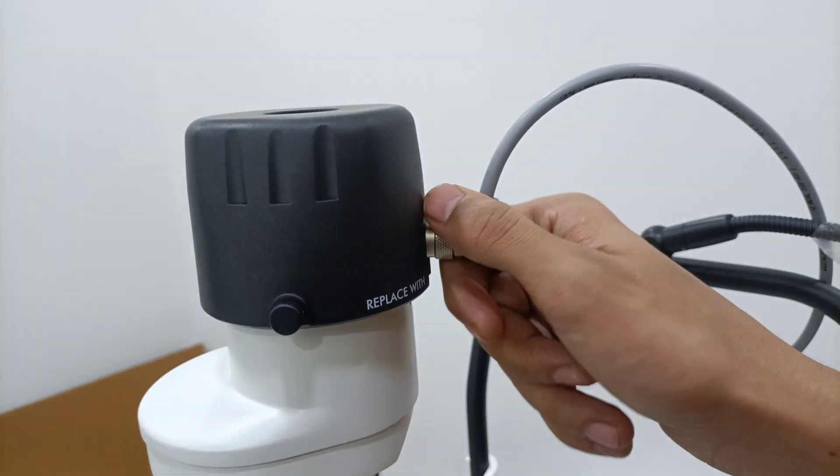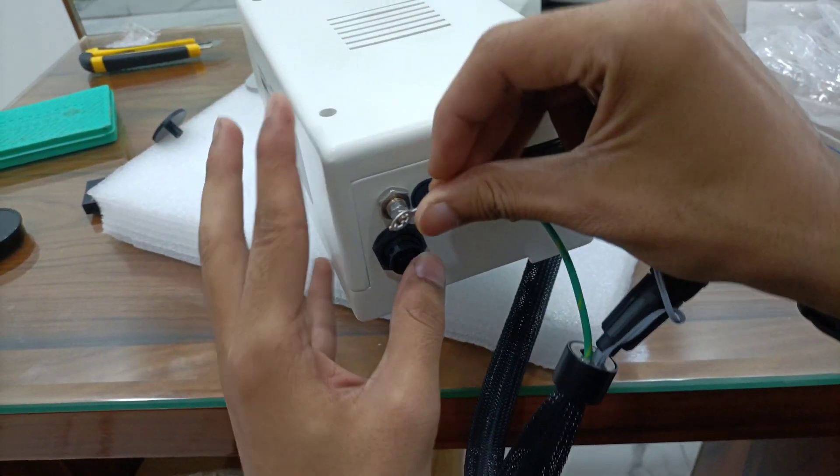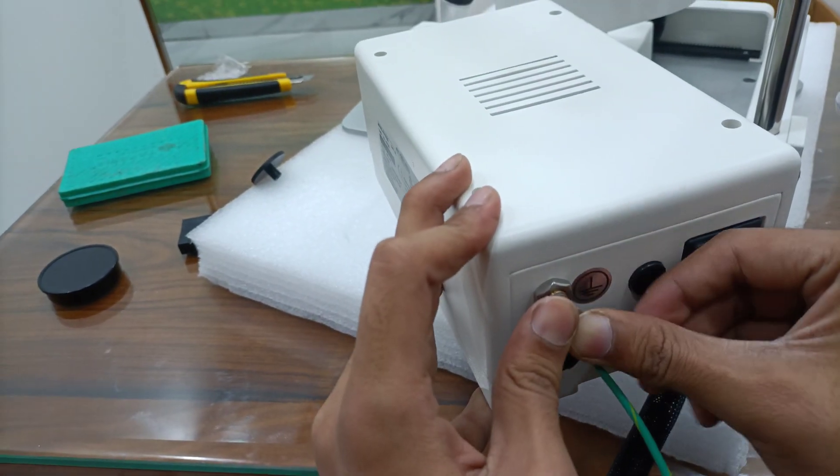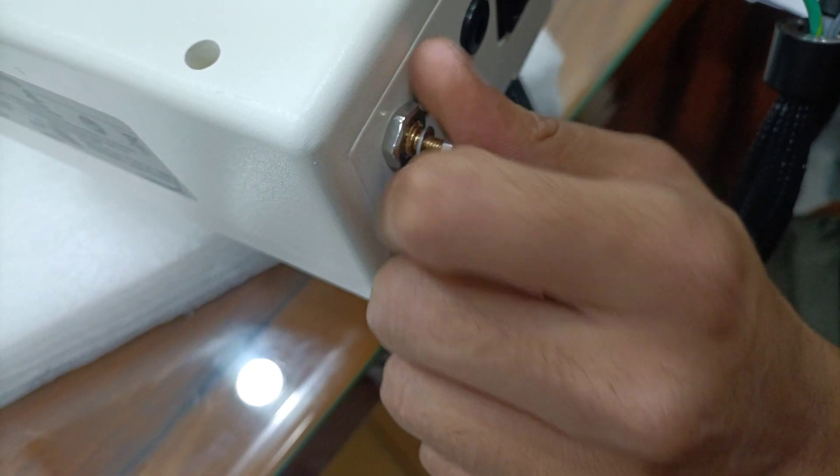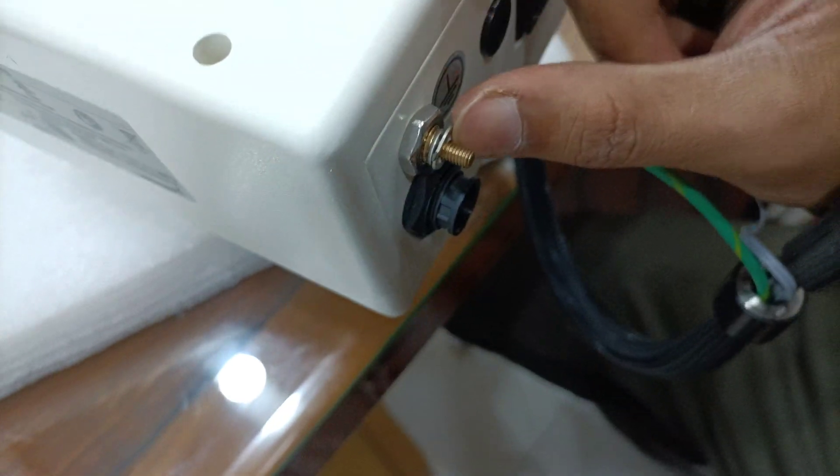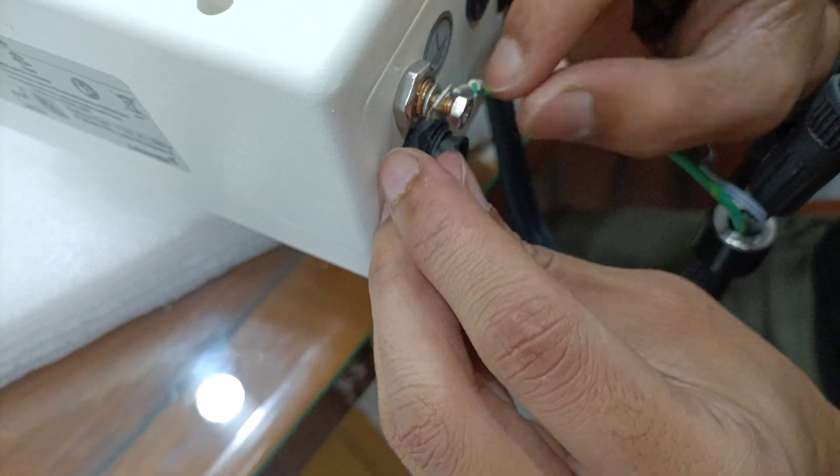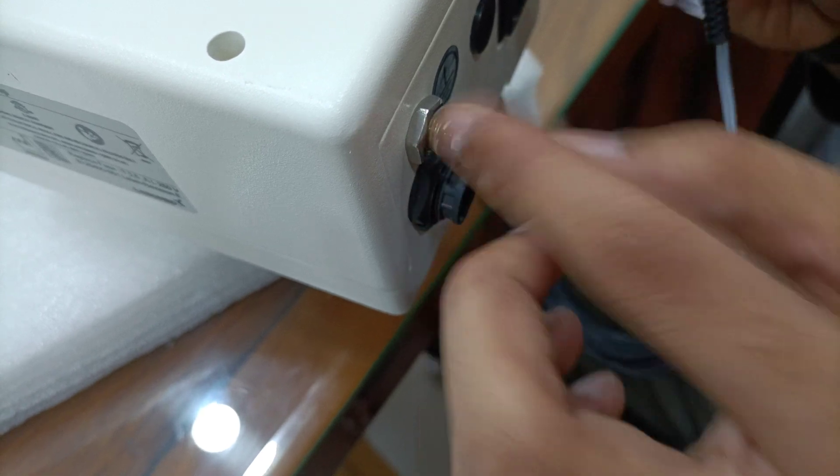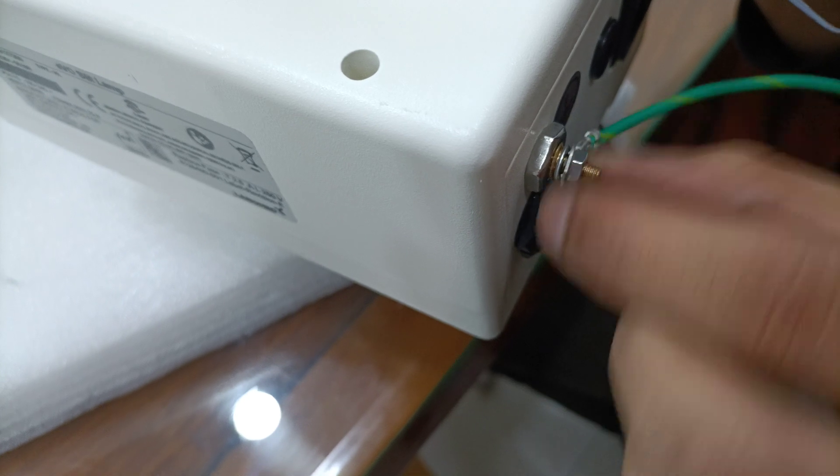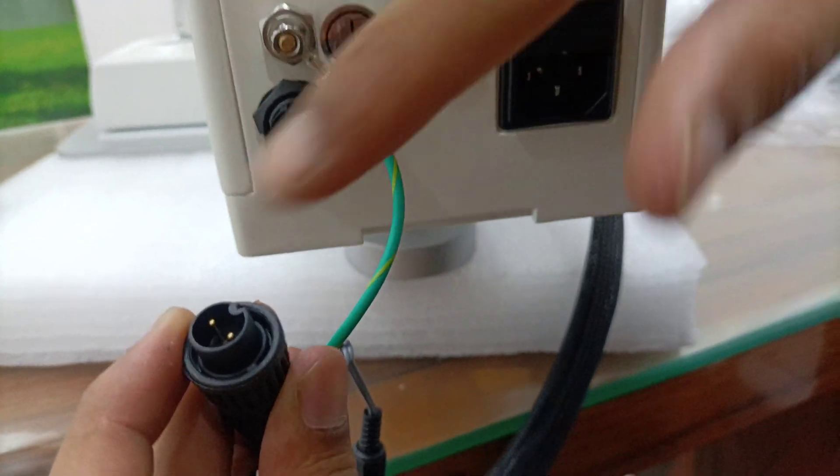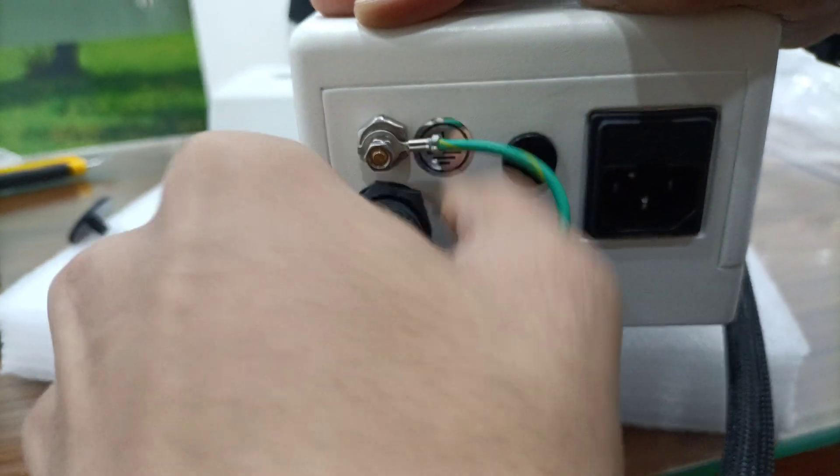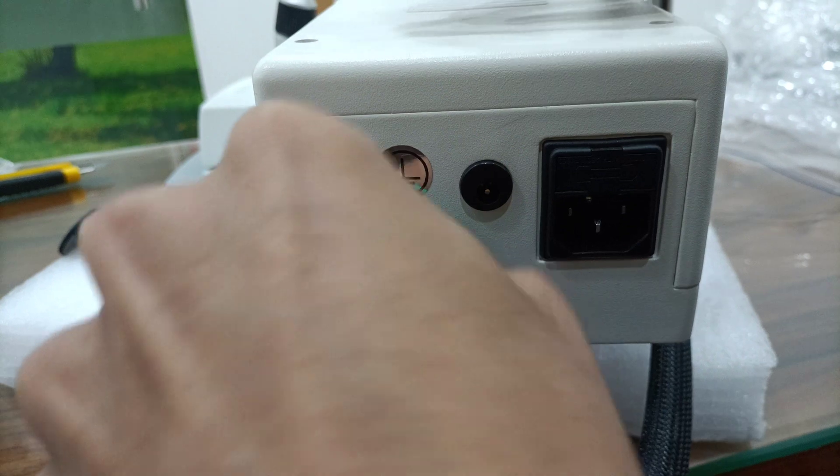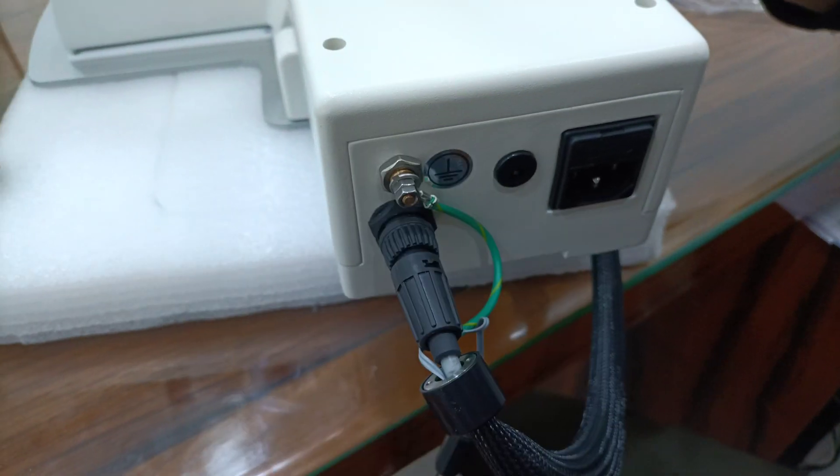Complete. First wire will fix here. Screw will loose first. Then we will tie it. Screw. Proper. Wheel tight. Second wire will tie it. See. Tied. Both wires tied.